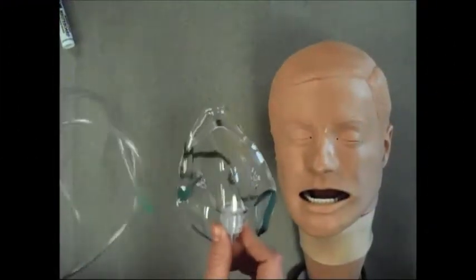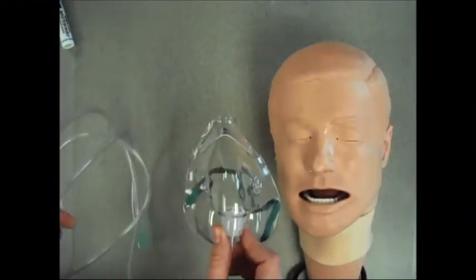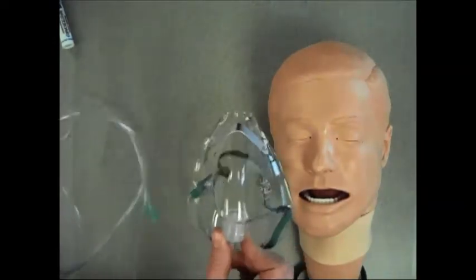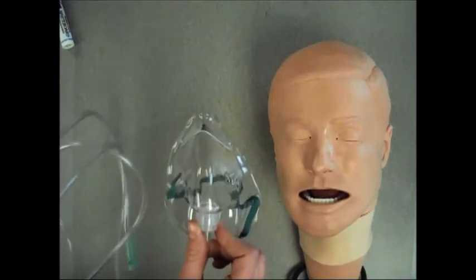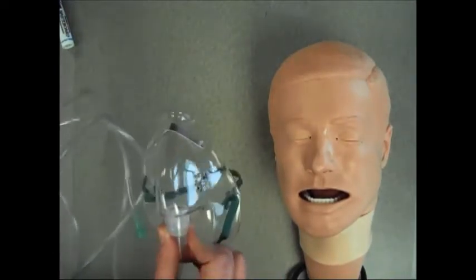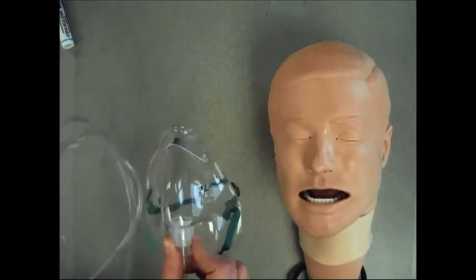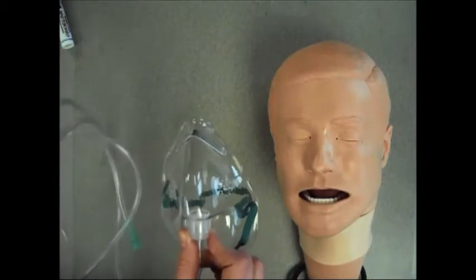Hey guys, we're going to talk about a simple face mask. What I have in front of me is a simple face mask. This face mask delivers low flow oxygen to a patient and helps correct or prevent hypoxemia. It also decreases work of breathing for your patient.